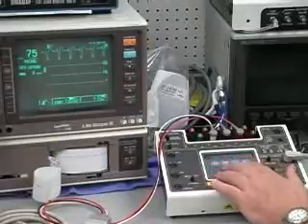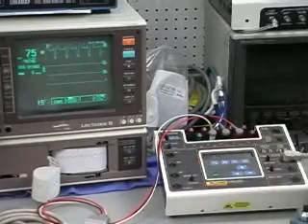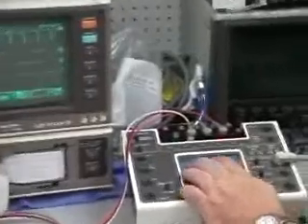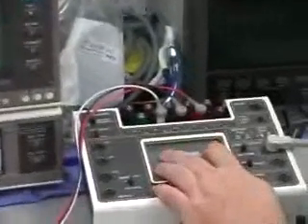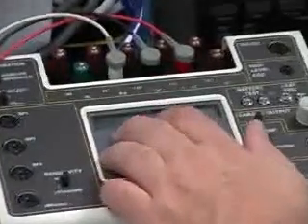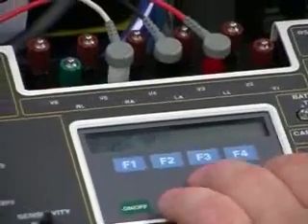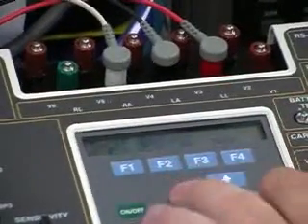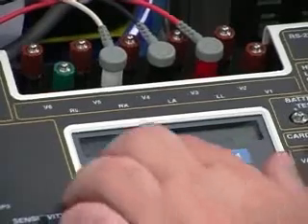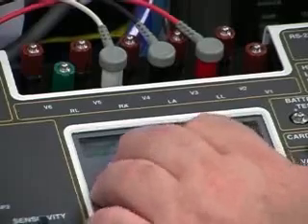And this is just a very straightforward little mode. First off, let's go to ECG, base, ECG 80. Okay, this is called the insert mode.